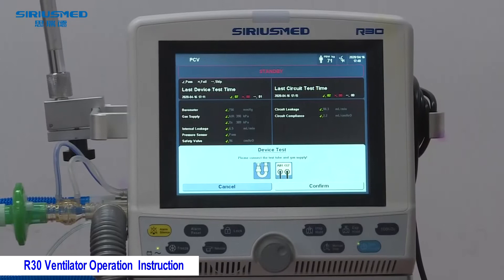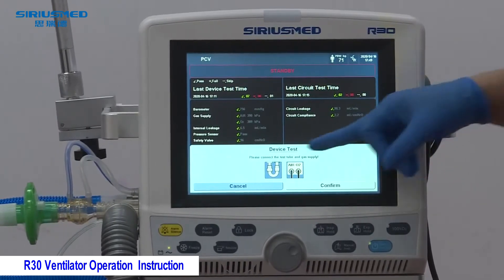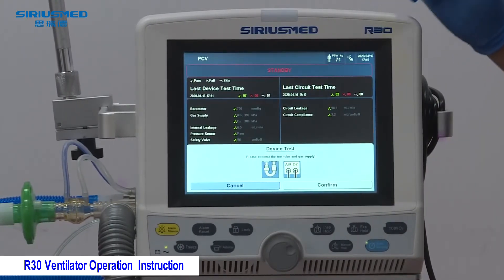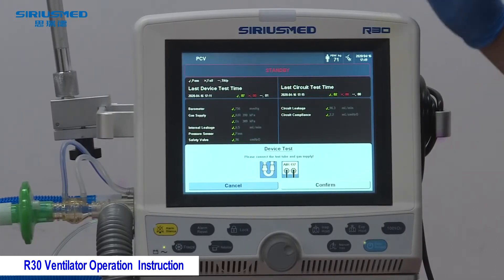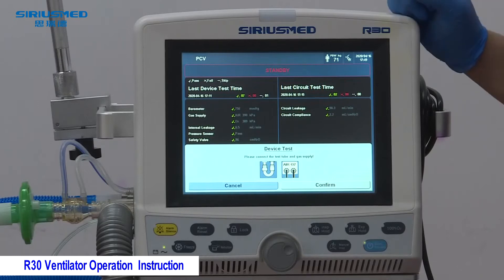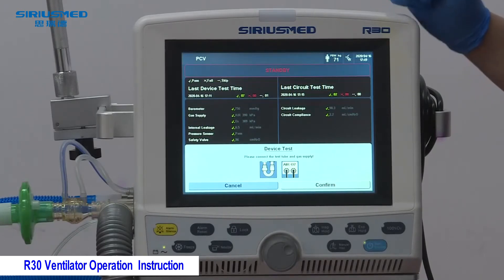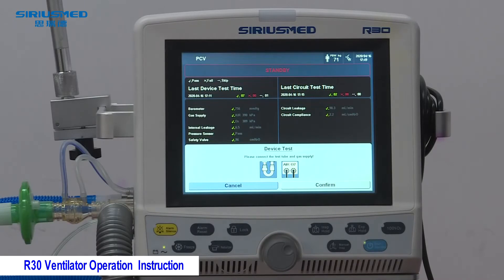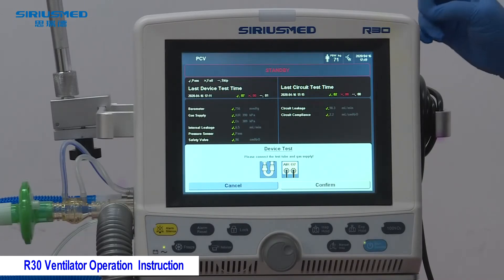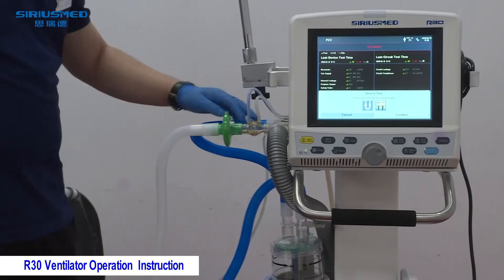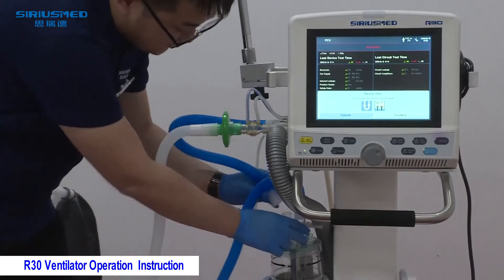For the device test, there is an instruction telling you to connect the test tube and the gas supply. You need to make sure the gas supply for oxygen and air is working. The pressure should be between 280 to 600 kPa, but for safety we suggest the pressure for the gas supply be between 315 to 500 kPa. After checking the gas supply pressure, use one tube to connect the inspiration part and expiration part.